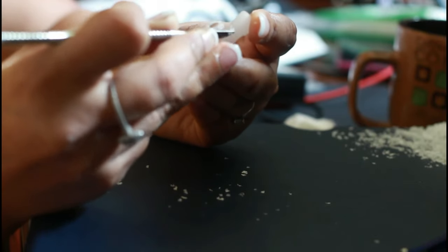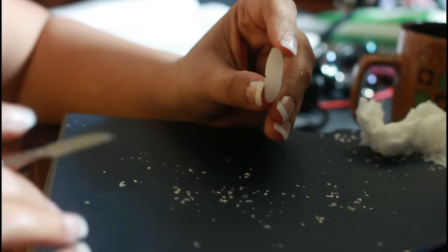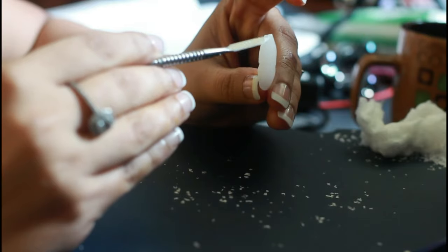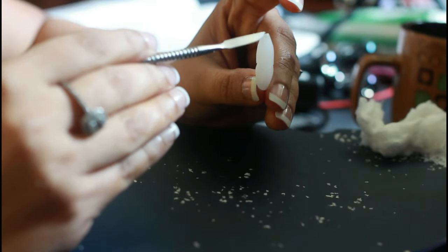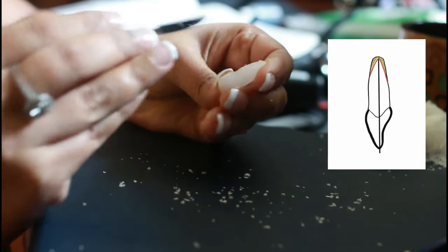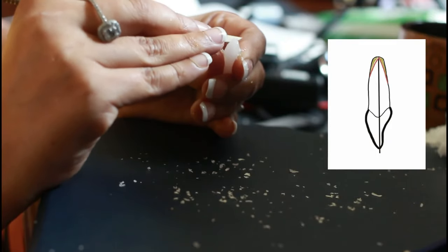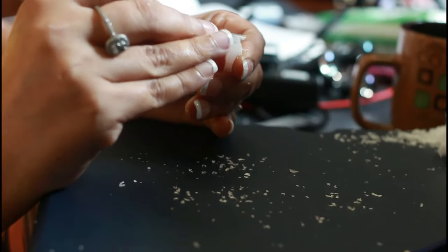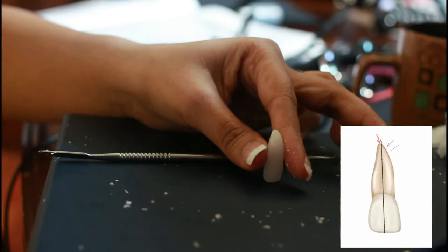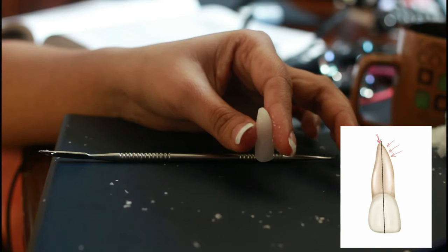The excess on the mesial and distal surfaces remains, so let's work on that — keep flushing the root surface with the crown surface on both proximal surfaces. Now let's get the root end to fall into the same midline as the incisal edge. Mark the midline again and get the root end roughly towards the center of the midline, following the contour of the root. You'll see the mesial apical half of the root tilts slightly off-center towards the distal.